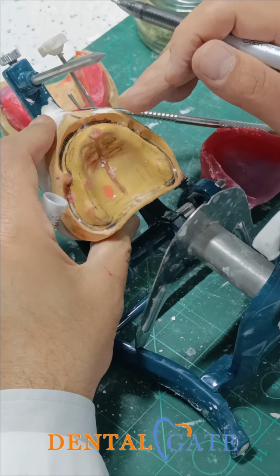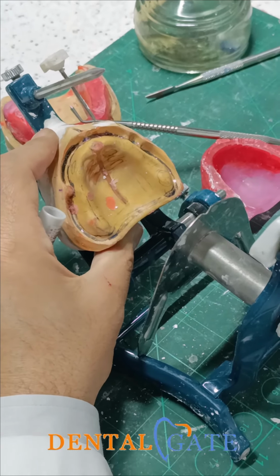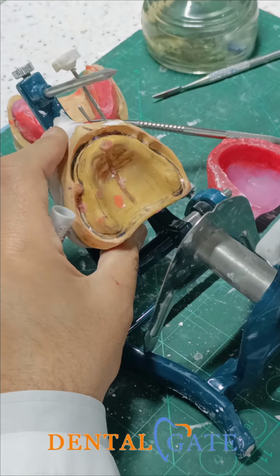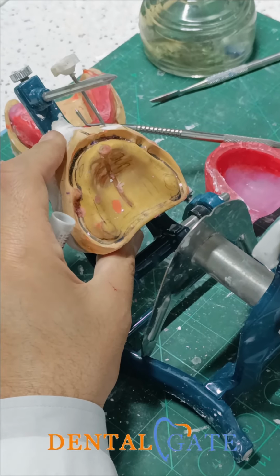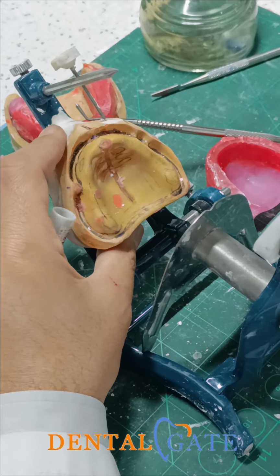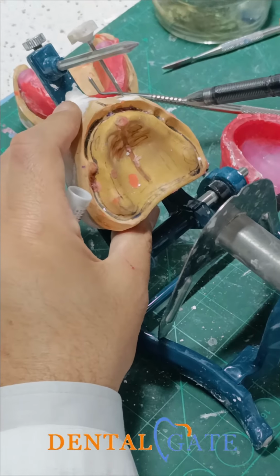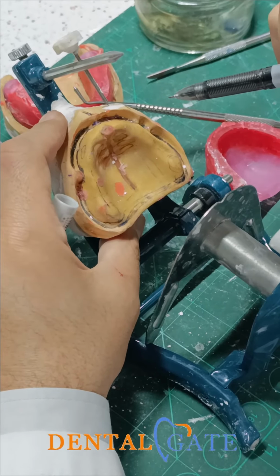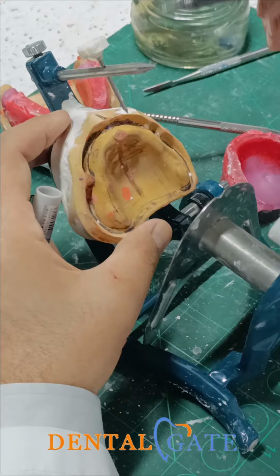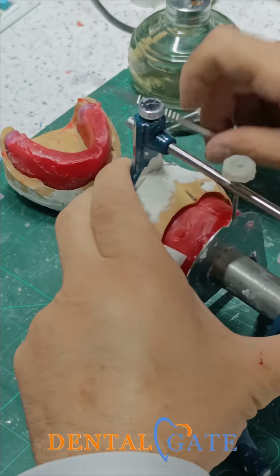As well as, we can make a registration in the patient's mouth regarding the smile line and the high smile. I will assign it at the maximum. I will depend on it within the patient's mouth. Okay. If you don't have this information, you can depend upon the canine eminence that will represent the corner of the mouth. So this information will be taken from the patient. There is no patient now.